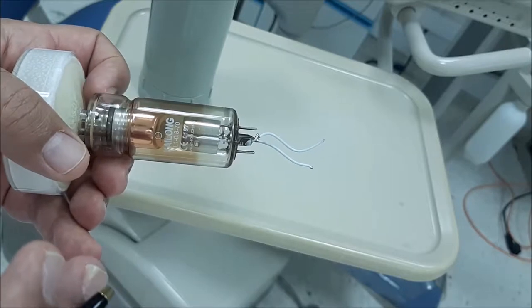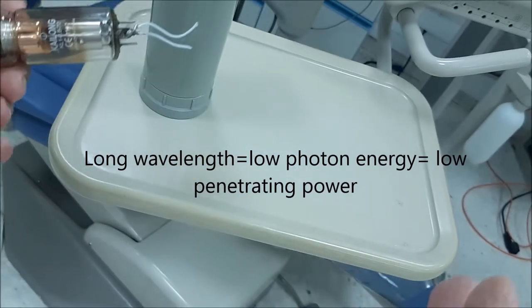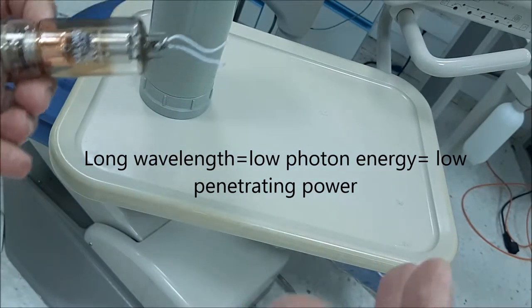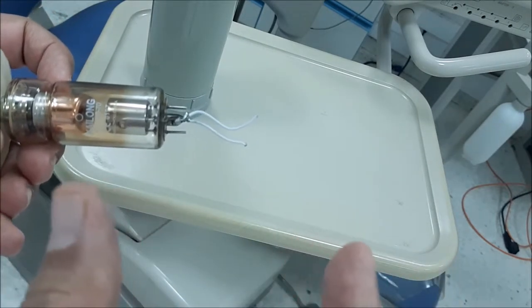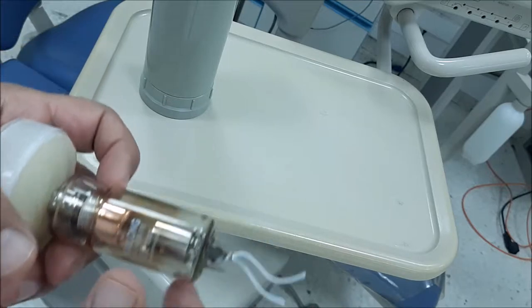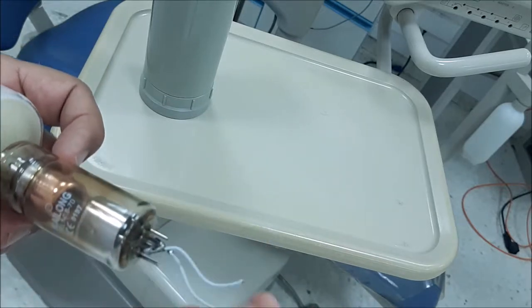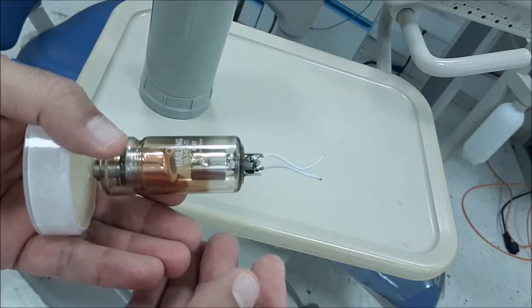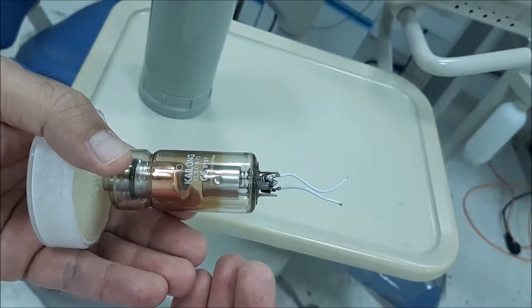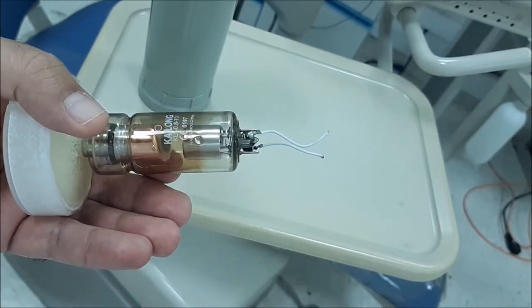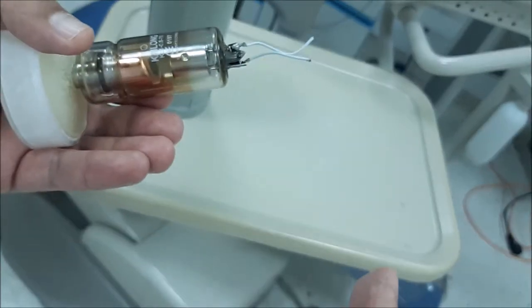Low or long wavelength photons that are of very low energy are not needed because they will reach the patient's skin without penetrating through the deeper tissues. So we need to filter them off.